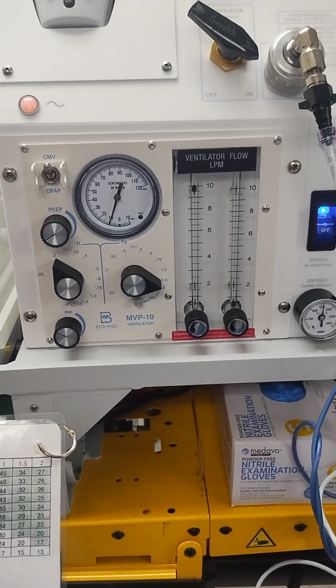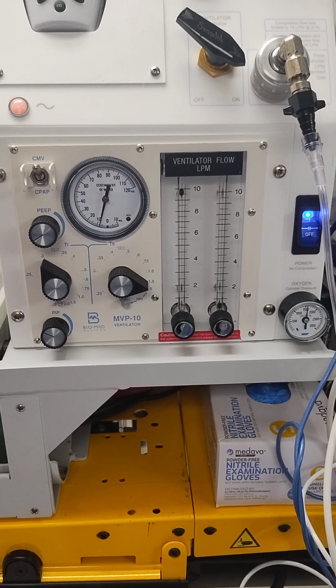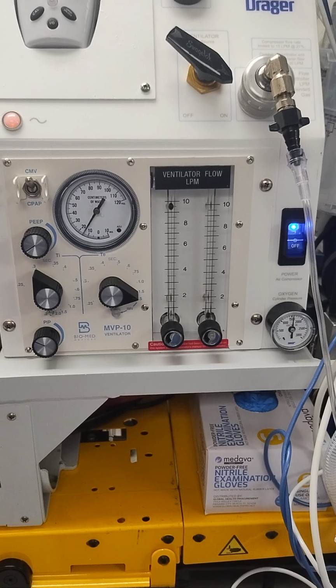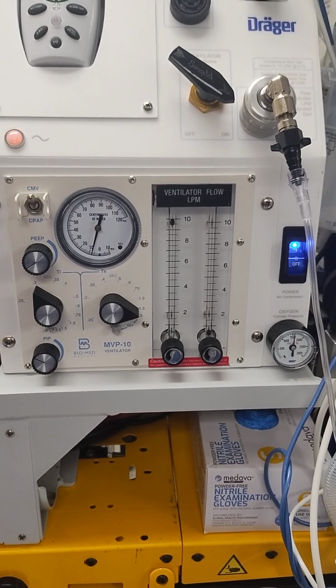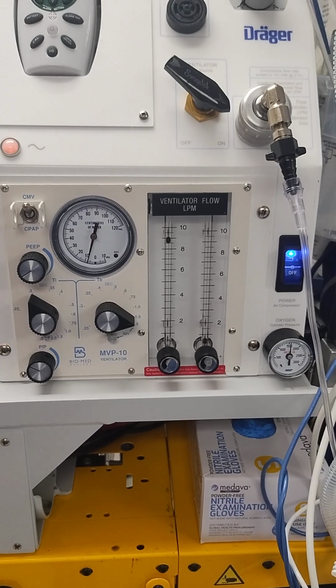I also recommend counting. Now with this particular ventilator, when the baby initiates a spontaneous breath, it's not going to get anything. So the chance for ventilator patient asynchrony and things like that would be increased, but I would say it's pretty much like it's bagging the patient for you.